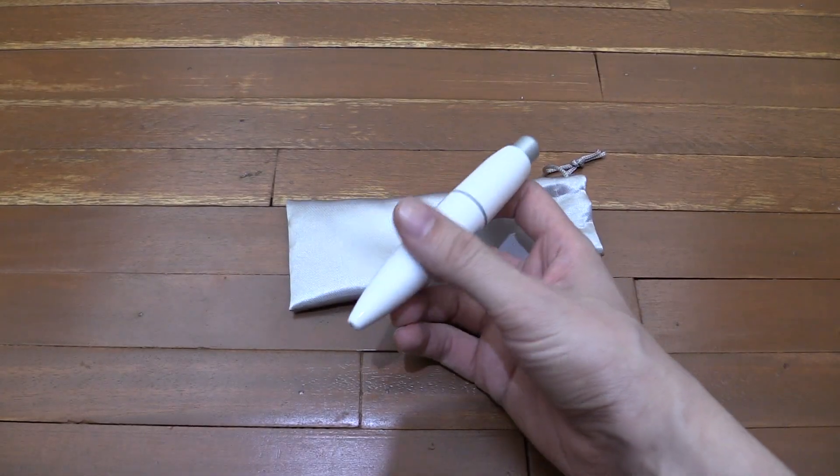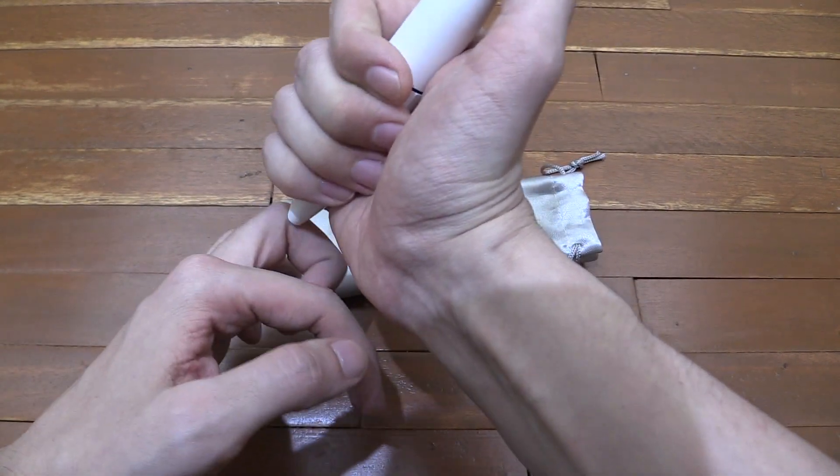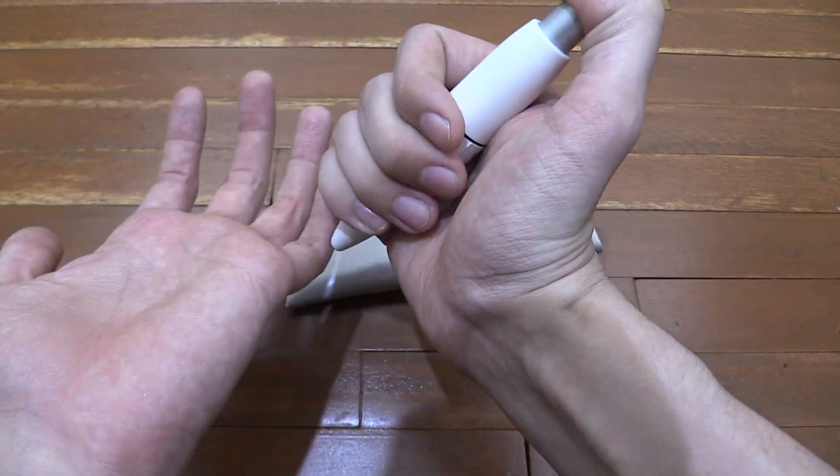People who have arthritis, especially in their hands, they might enjoy something like this because you can use it on the digits here and it should really help you.